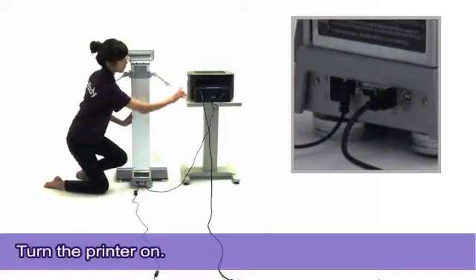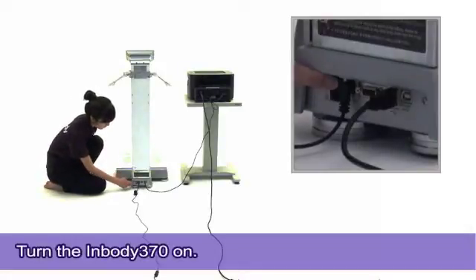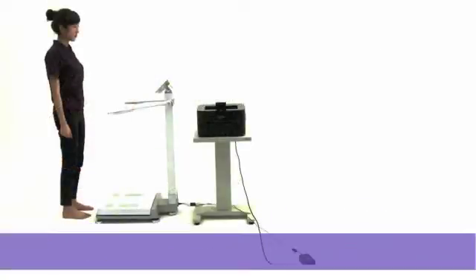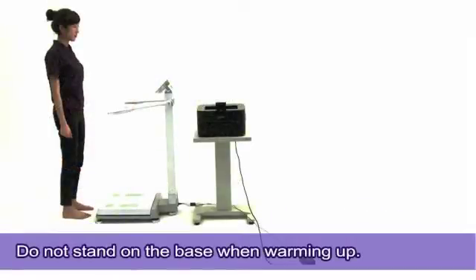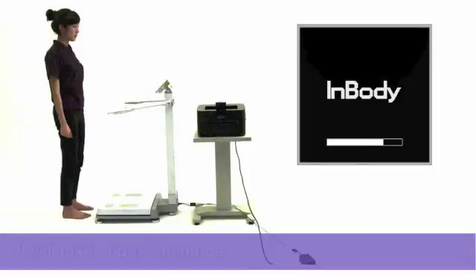Turn the printer on. Now, turn the InBody 370 on. Do not stand on or apply pressure to the base of the InBody when it is starting up. Applying any weight or pressure to the base may result in inaccurate measurements. It will take about 2 minutes.